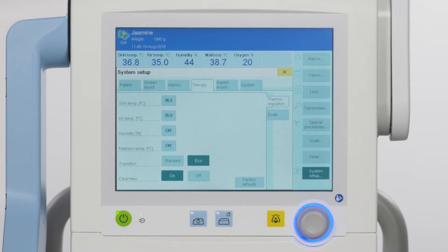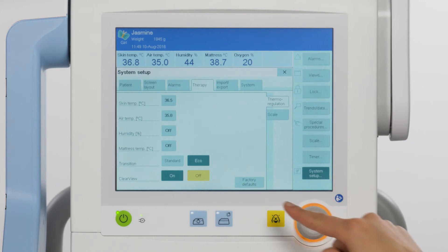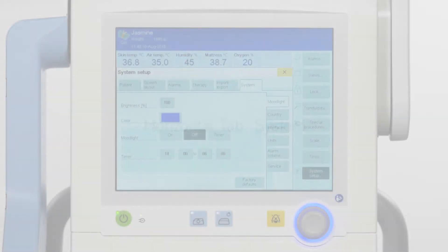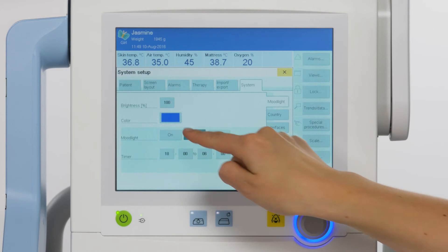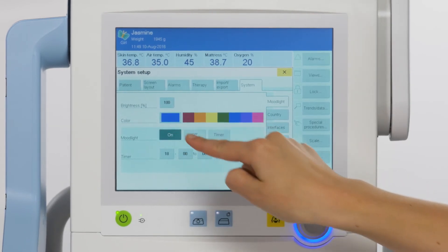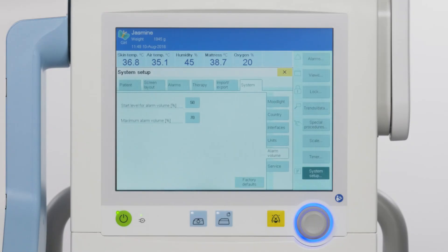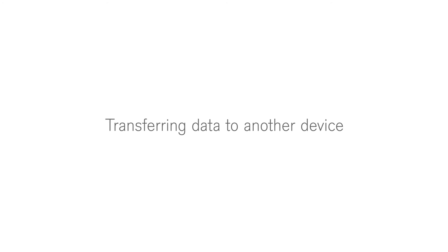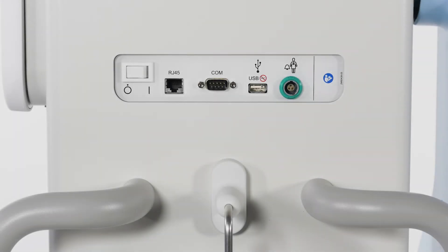Clear view switches on so that the radiant warmer operates at low power and reduces the level of fogging on the hood. Clear view can be switched off when transition is set to eco. The mood lights can be switched on and off and the color can be changed. In the alarm volume tab, you can see the start level and maximum level in percentage for the acoustically given alarms.